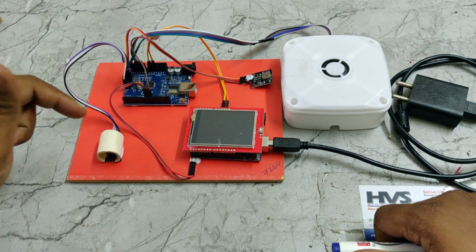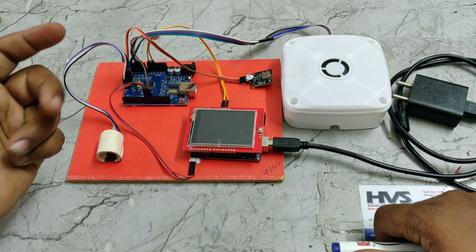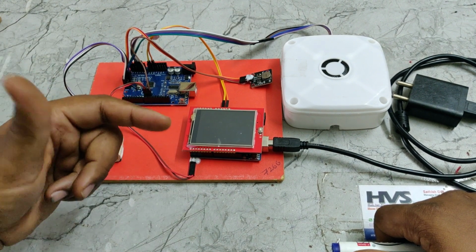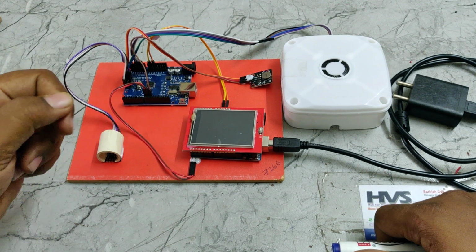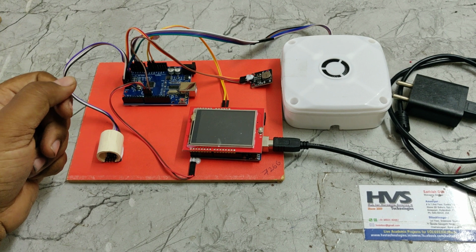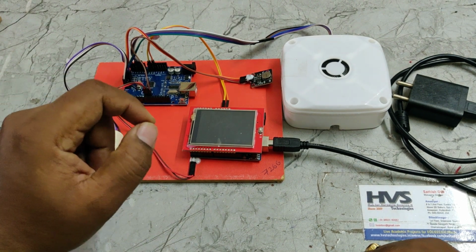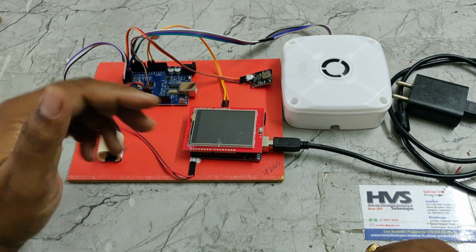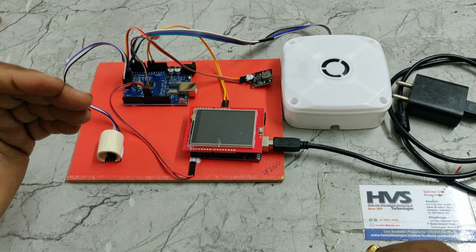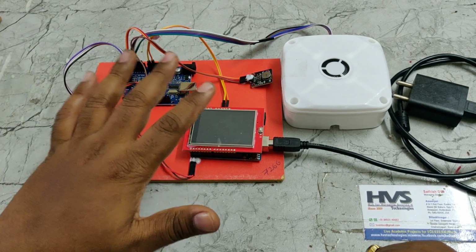For those checking their glucose levels with the help of this system, it will provide vibrations. If the glucose level is low, it will provide intermittent vibrations of around 500 milliseconds. If the glucose level is above 160 milligrams per deciliter, it will provide a 2.5 second vibration alert. So there is a difference to let us know whether the glucose level is low, normal or high. For normal, there is no vibration output.